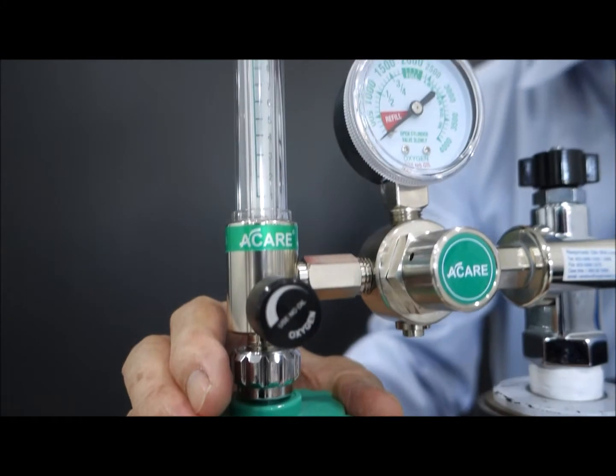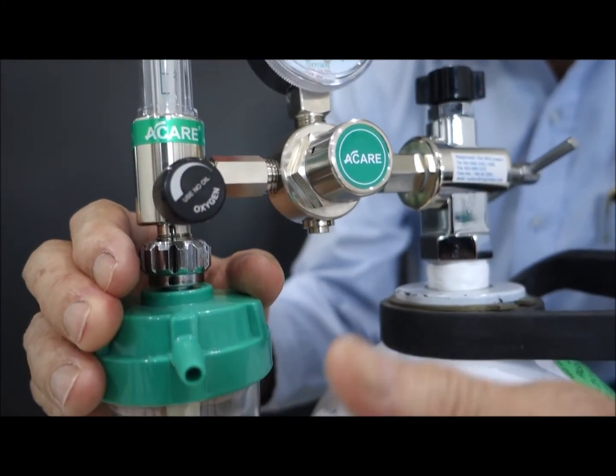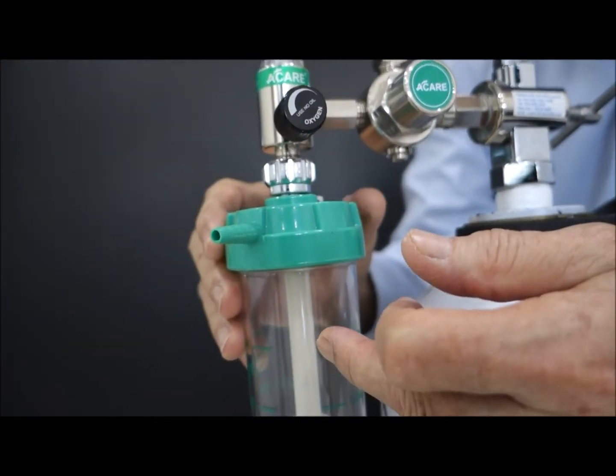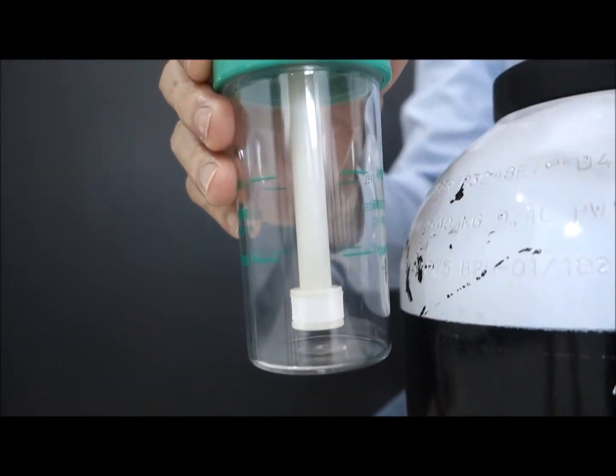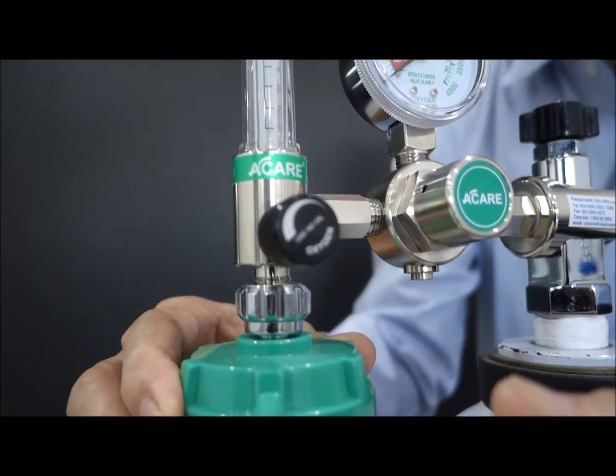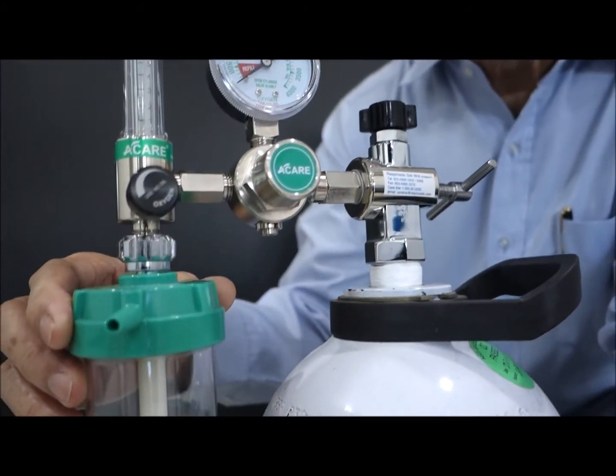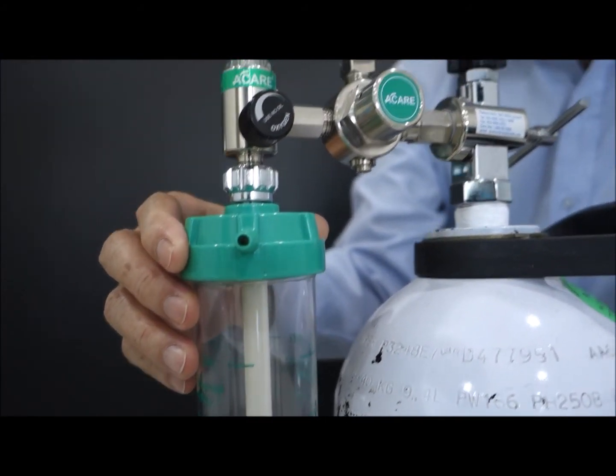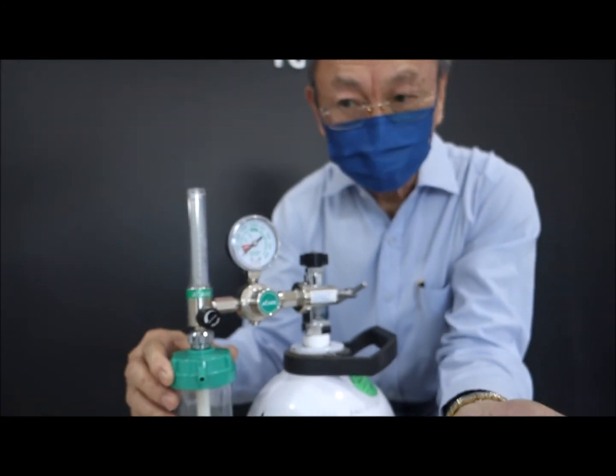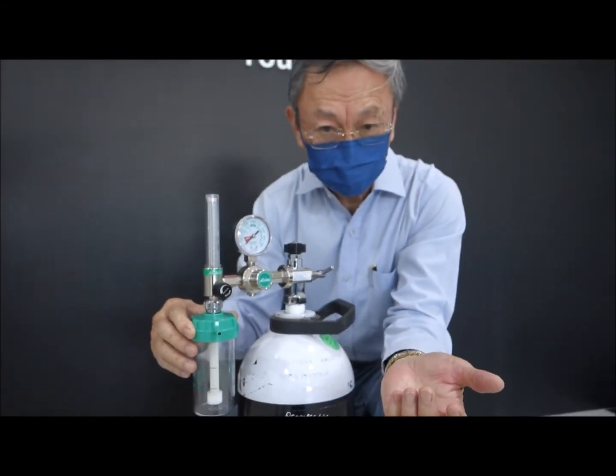Don't try, never overfill this. Remember, fill to the maximum level and lower level here. Keep the water level between the minimum and maximum. And ideally, fill it with distilled water. If you don't have distilled water, fill it with boiled water, and then try to change it on a daily basis.